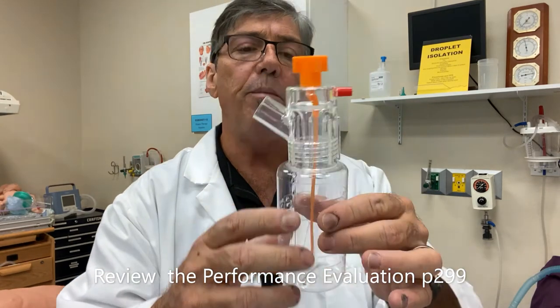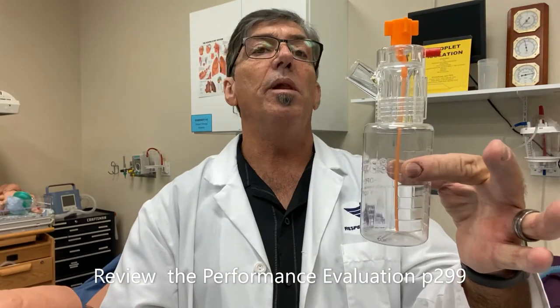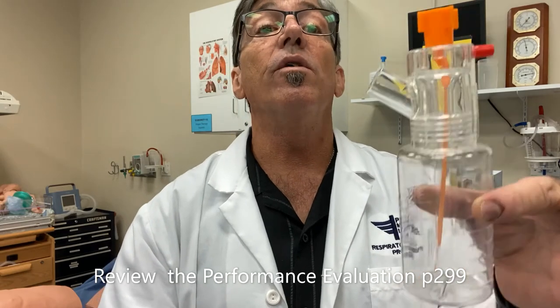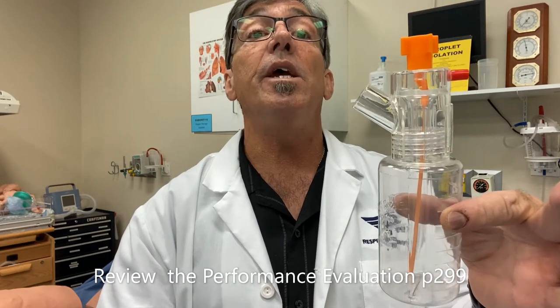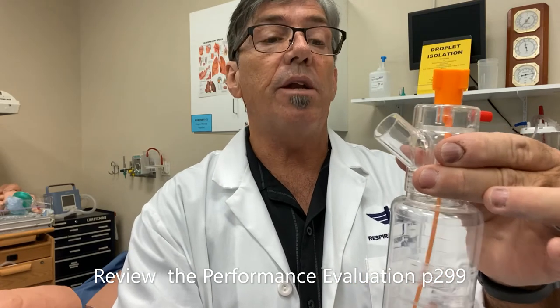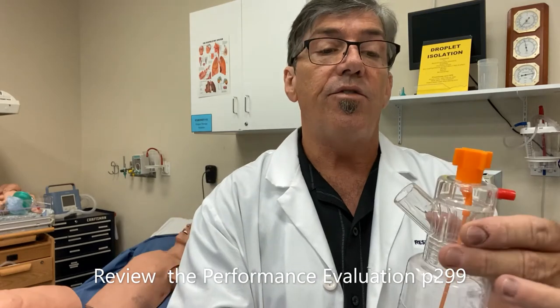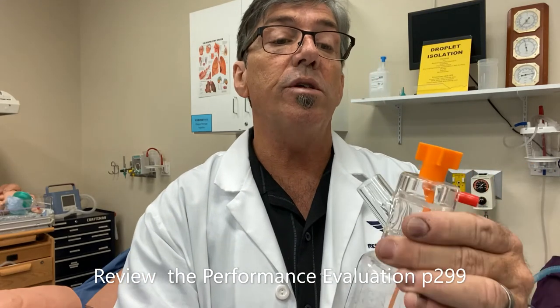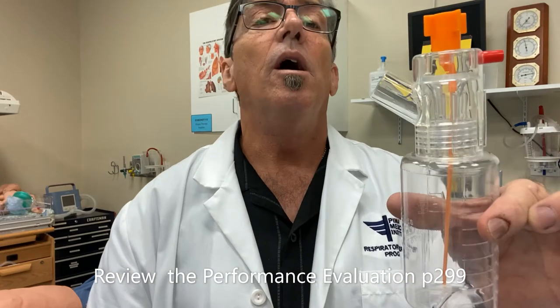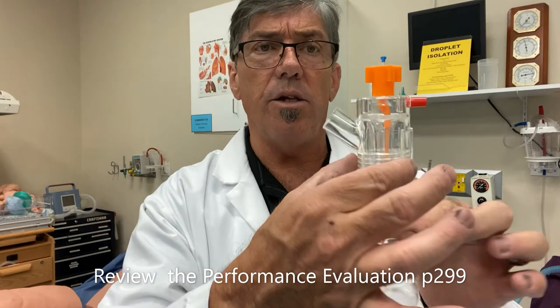Here is the Hope Nebulizer. It's somewhat of a large volume nebulizer, kind of a specific-use device designed to deliver continuous medication. As you can see, it can be connected to a flow meter on a blender, which is recommended. This doesn't have air entrainment ports — there's no FiO2 adjustment like we saw on our bland aerosol nebulizer that has the dial and the Venturi.